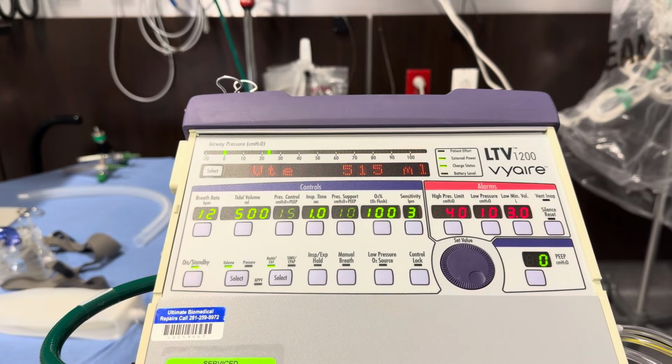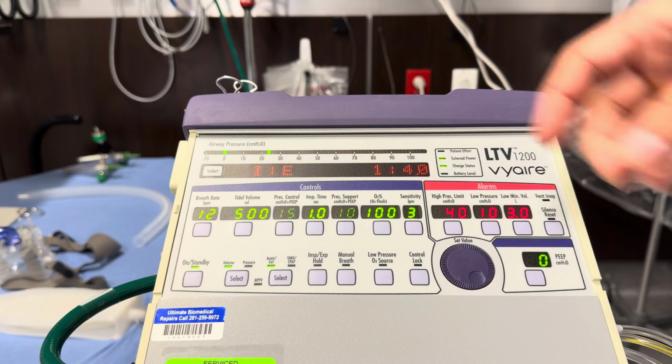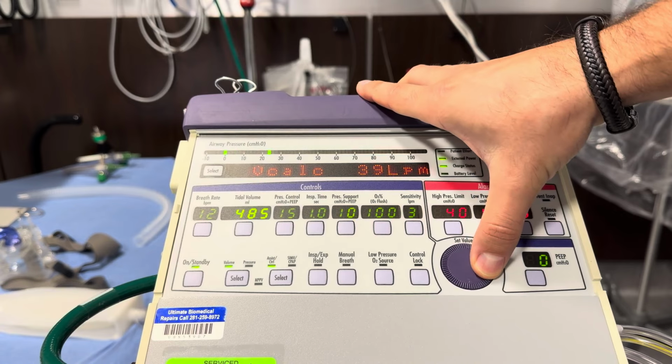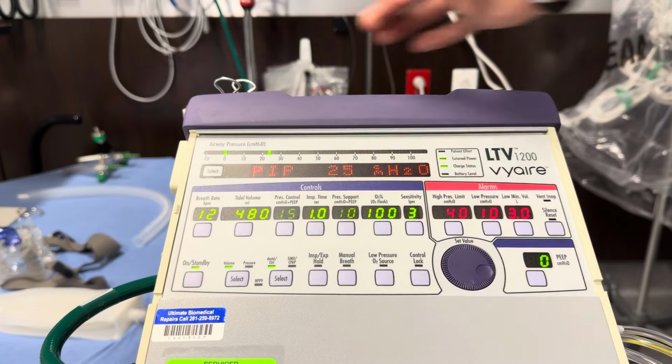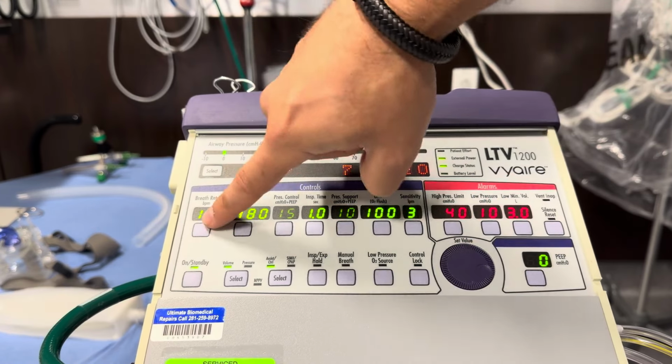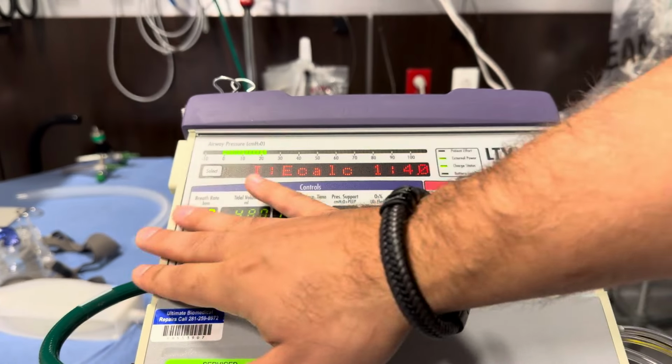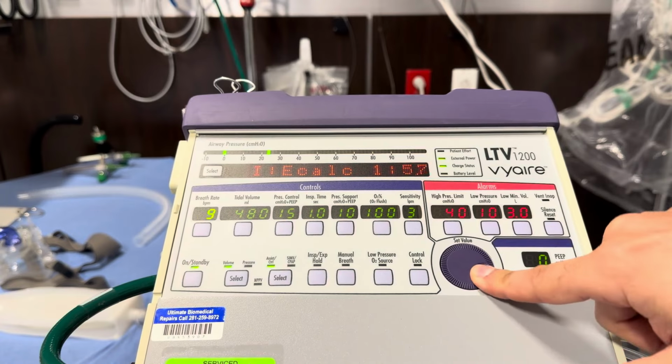So our tidal volume will be 6 to 8 mLs per kilogram, and that's the 80 kilos. So we'll start out at 480, because that's that 6 times 80. Okay, our respiratory rate is already set to 12. If we needed to change that, you just click it. Now you can see it's the only thing highlighted. Change the value to where you want it.